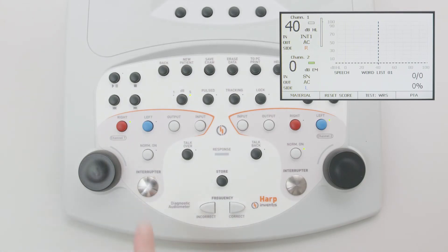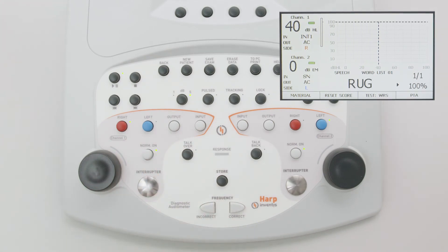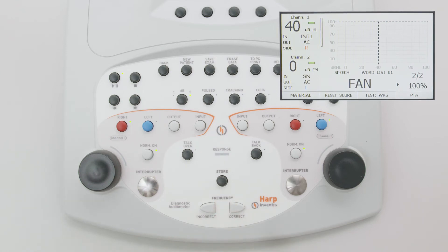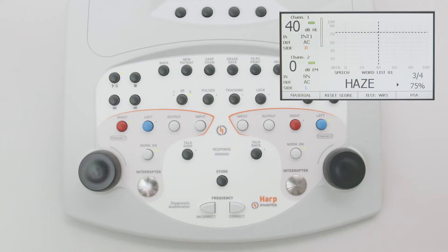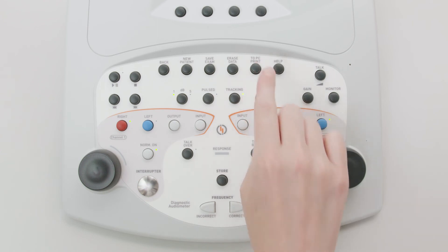To start the test it is necessary to make sure that the norm-on is activated. The responses given by the patient are saved by pressing the two frequency selection buttons, which are also labelled correct and incorrect. The store button allows you to save the results. The function key F2 — reset score — below the display resets the correct or incorrect answer counters and the percentage when needed. If the audiometer is equipped with the thermal printer, the print button starts printing the current test.